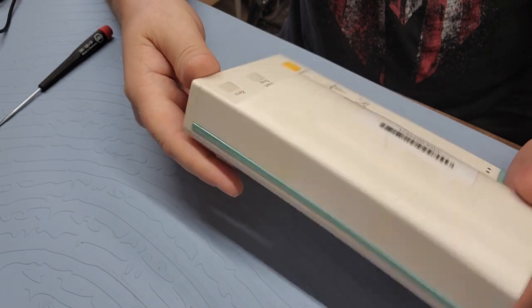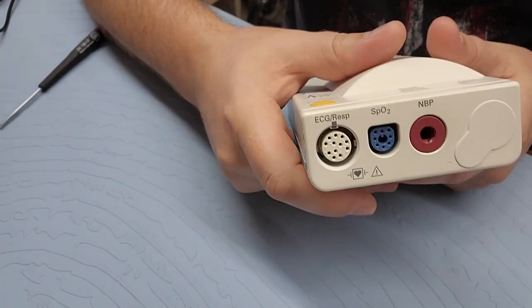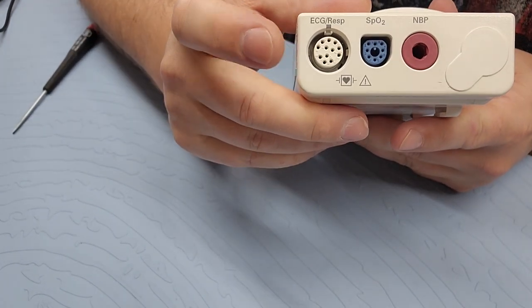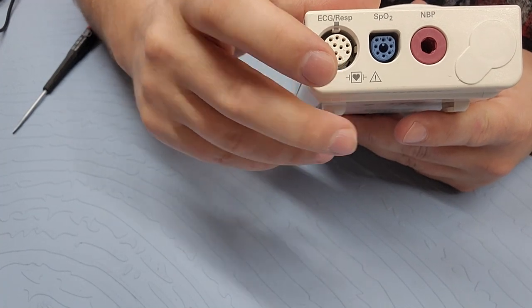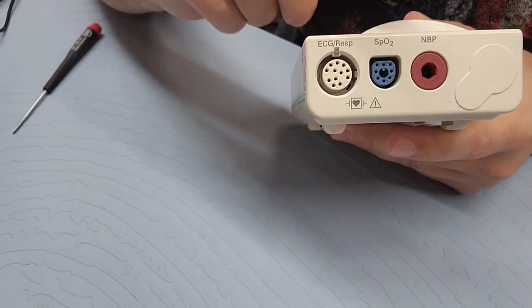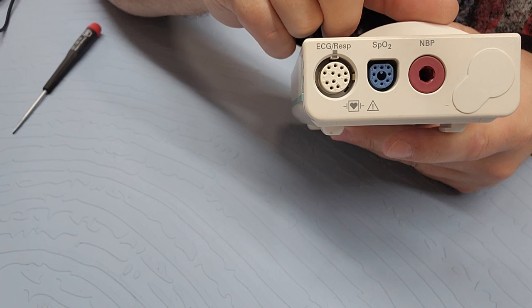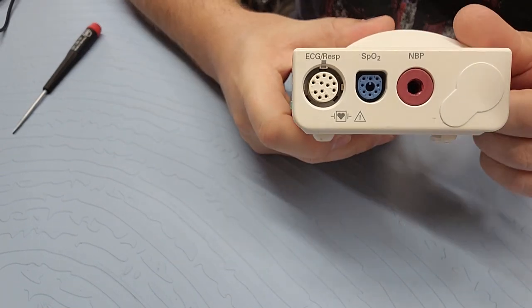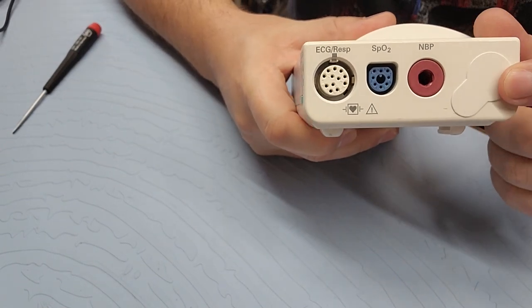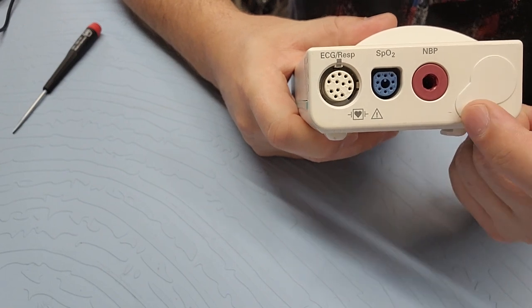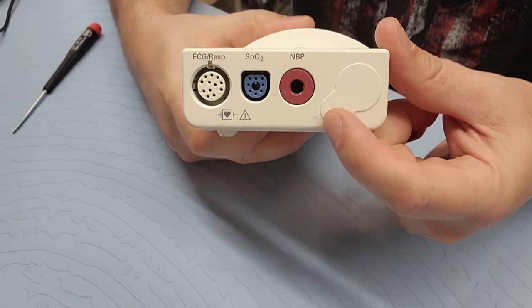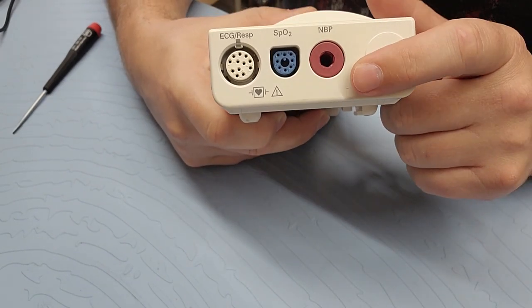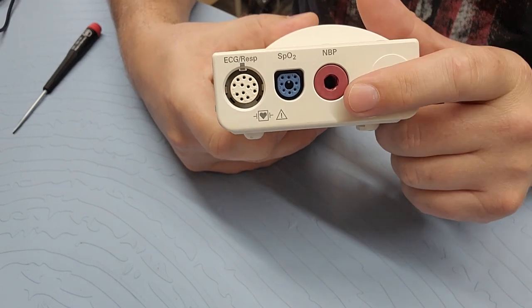So this unit, it's very simple. You can see I have ECG respiration, I've got the SpO2 and the NBP. Also, there will be an arterial and temperature. You can see that it's got a little offset right here and that option is not on this one, unfortunately.